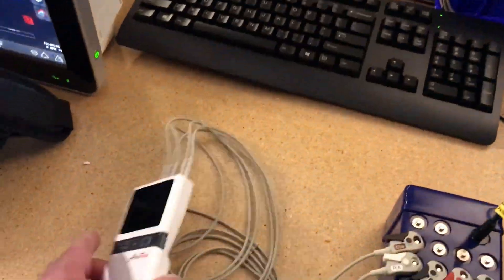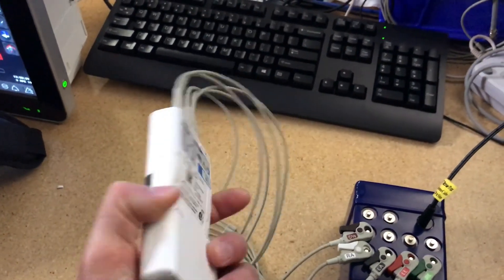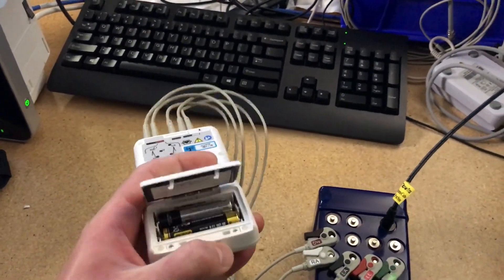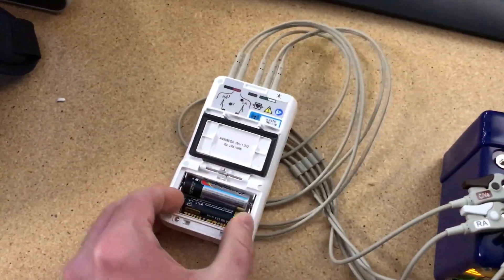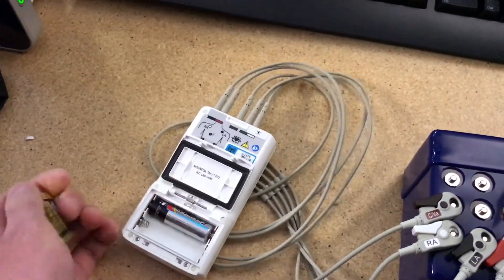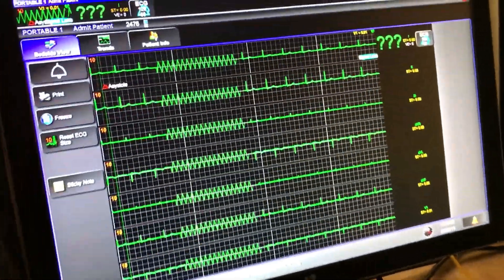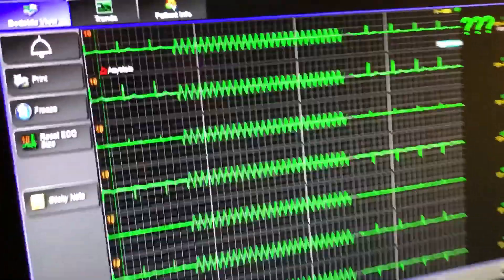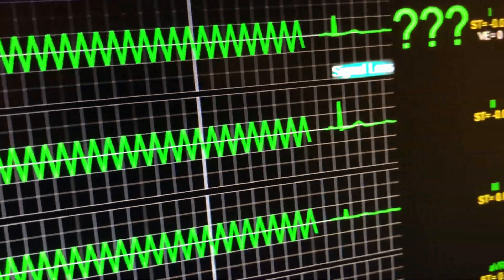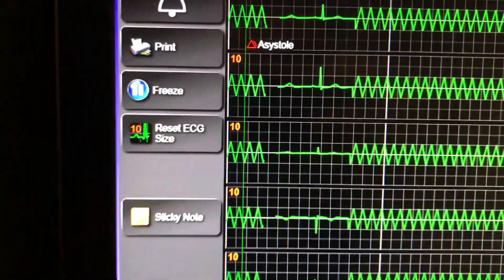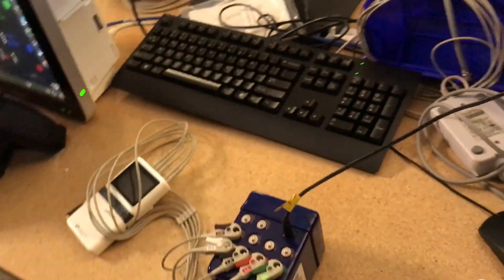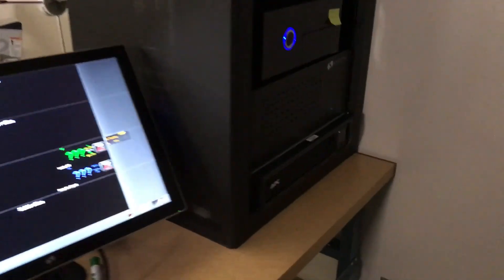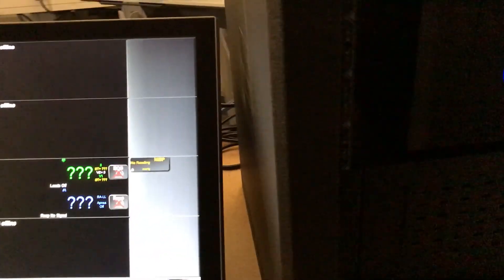The other scenario is that the transmitter stops putting out information and it is handled differently by the system. So I'm just going to remove one of these batteries. So you heard that ding, which means that the central station has stopped receiving information. You'll see this triangle waveform that's being put out, or rather, that's being represented by the telemetry unit. And that's just in response to the telemetry unit not receiving a signal from the transmitter anymore.